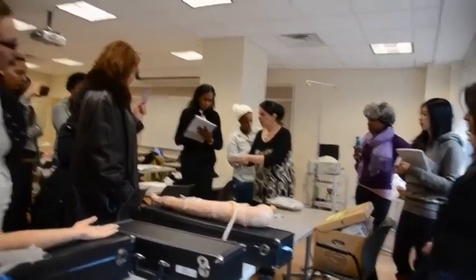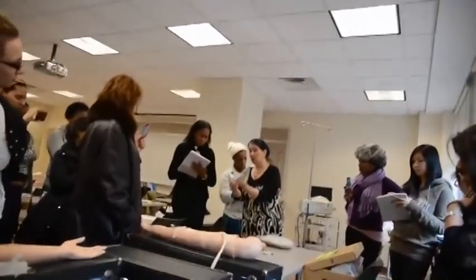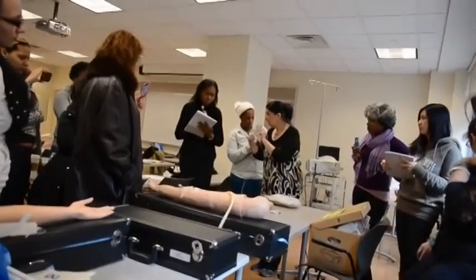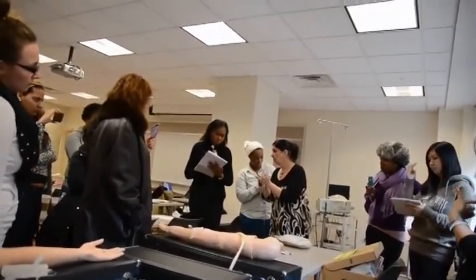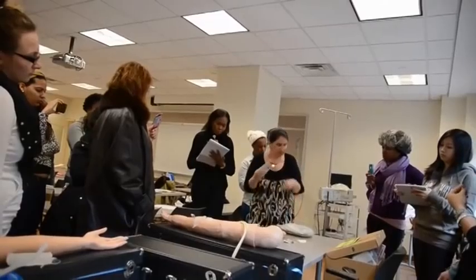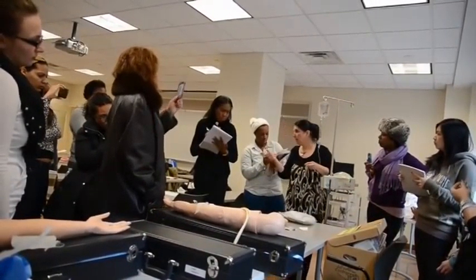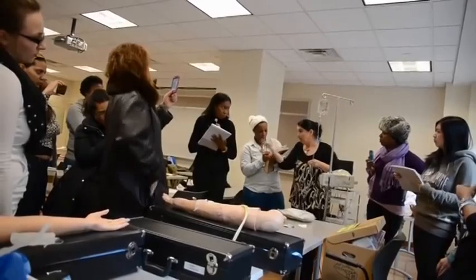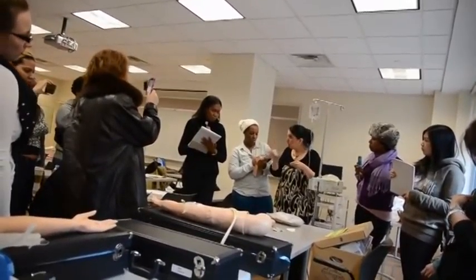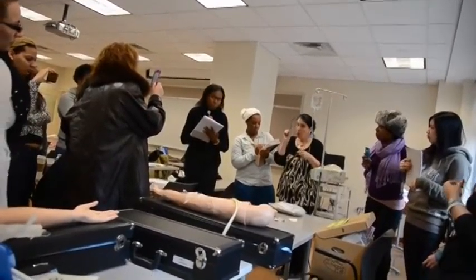I filled in my flow rate. I'm going to put the label on the back of the bag, not where the writing is. Don't put it on this side — put it on this side, there's nothing here. So now I want to get this out of my hands. I'm going to put it up here. Remember, you are IDing the patient, and you're going to do all of that when you come to the patient's bedside. I'm just showing you the skill.